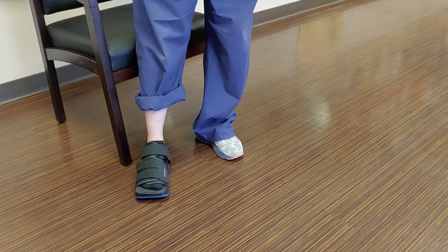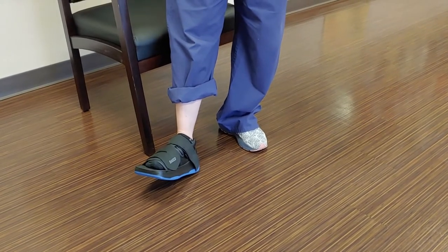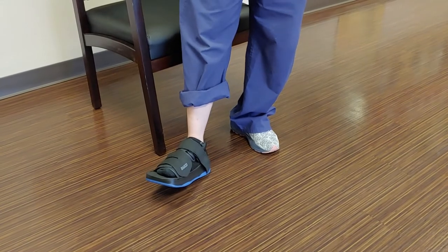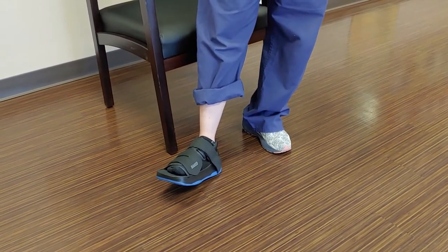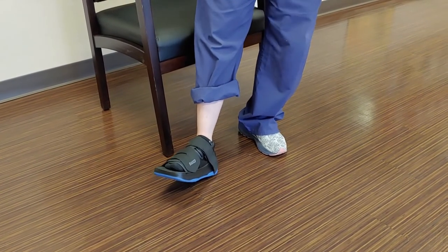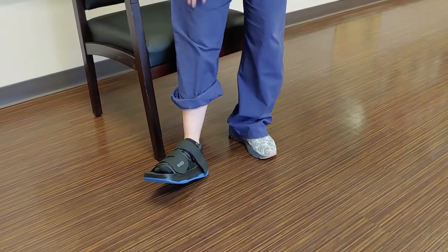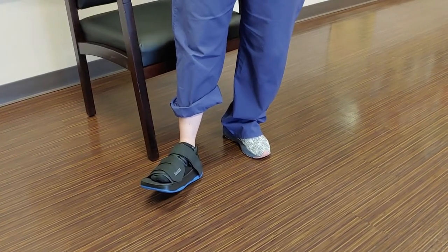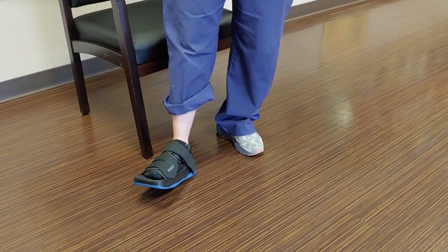The next walk to demonstrate is heel walking. It's very important to understand that heel walking is not comfortable — it's a position you're not supposed to walk in normally. If your doctor has instructed you to do it, you need to decrease your activity so you don't injure other things like tendons, or cause cramps, hip, knee, or back issues. It is meant to slow you down. I'll show you how to do this properly without the risk of harm, injury, or tripping.